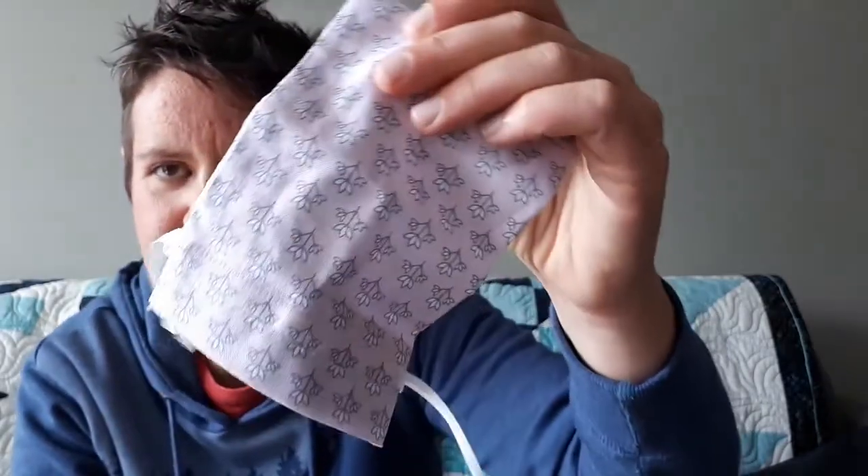Okay, so here's what's in the box. There is of course the menstrual cup — you can see it's quite soft and it's very small. It kind of reminds me of the Maluna cup with the ring on it. And there's also a nice carrying case, a pouch that you can store your menstrual cup in between your periods. I like the design and the logo of this; it's quite nice actually.